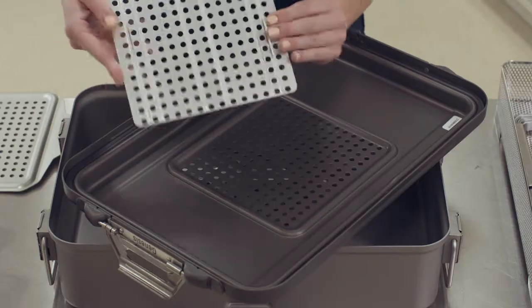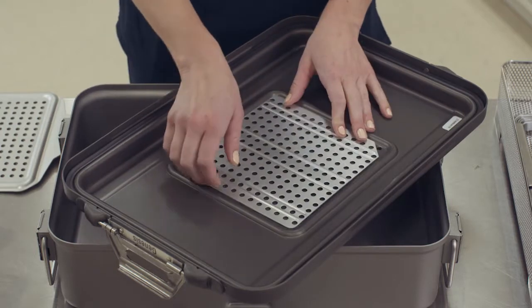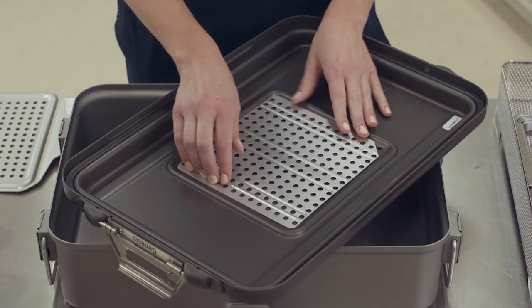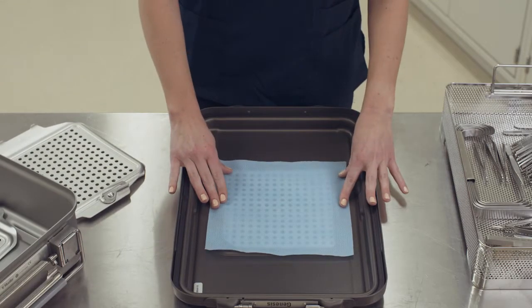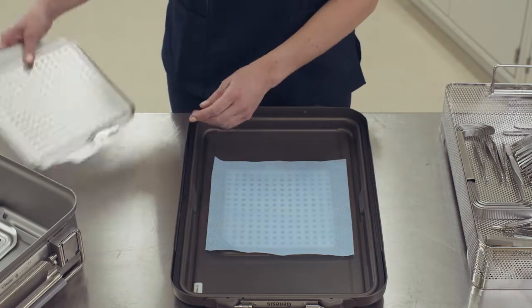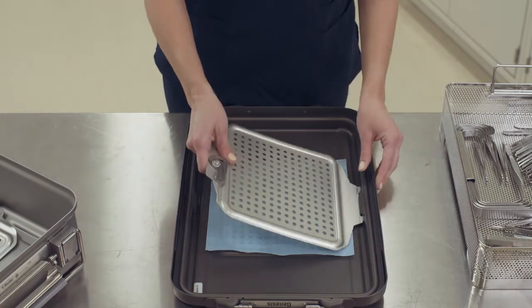If the optional protective plate is used, place the optional plate directly over the perforations. Place a new filter on top of the optional protective plate. The filter should overlap the filter ridge on all four sides. Place the retention plate on top of the filter.